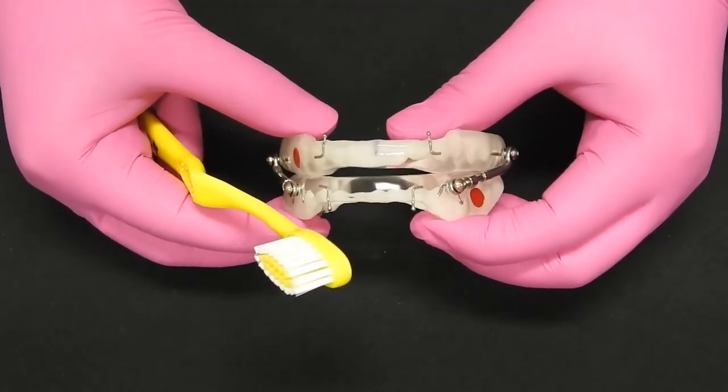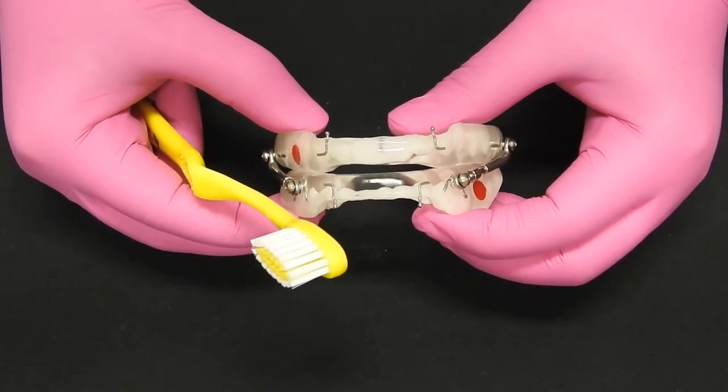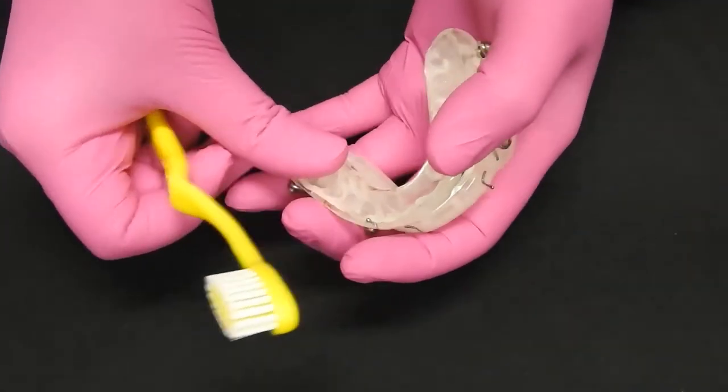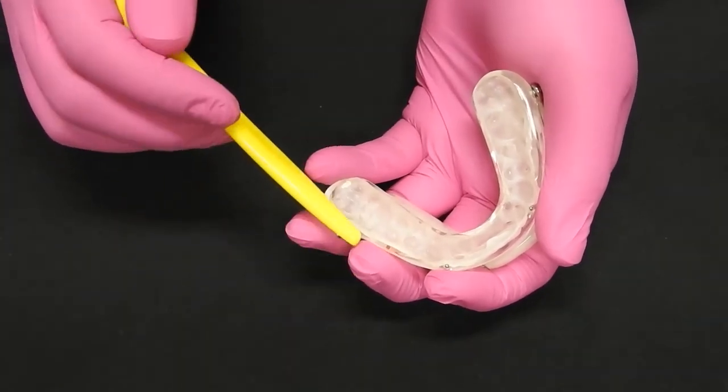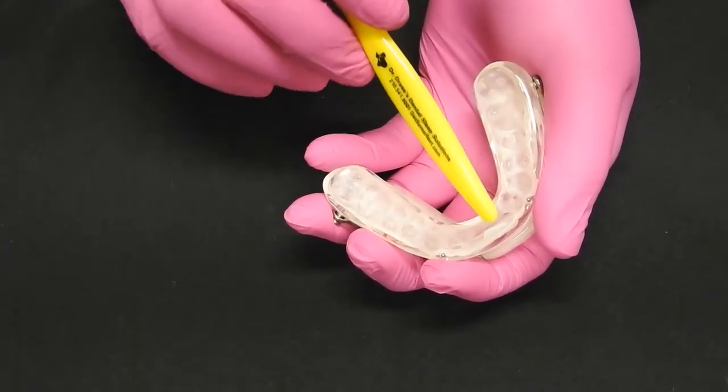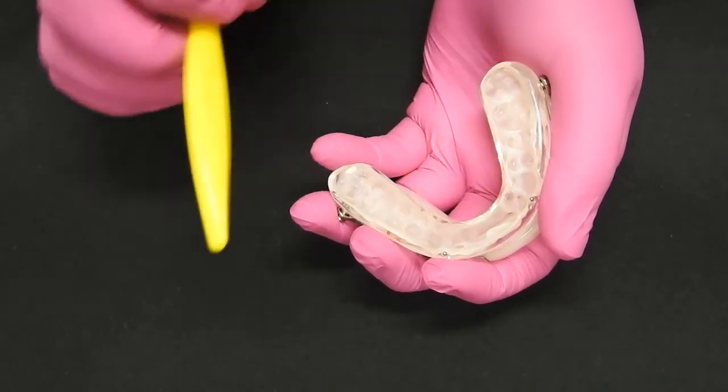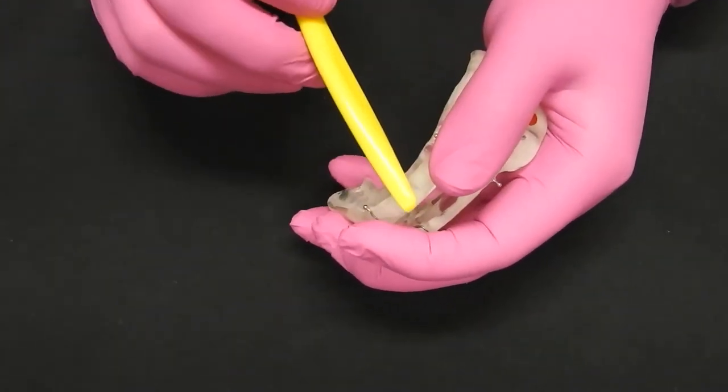Make sure that when you're cleaning your device, you do not hold it like this. When you hold it like this, you put pressure here and here, which creates force and an opportunity to break.